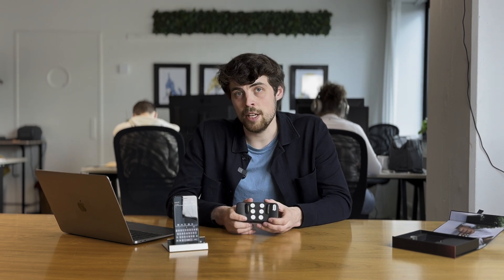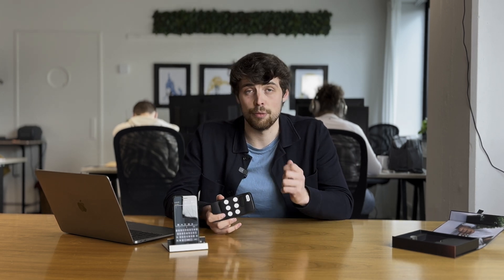Once we start typing, we'll use a combination of buttons at the same time, and this is based on using braille. Get yourself familiar with the numbering of the different buttons — it is quite easy. After a while you might even forget the numbering because you'll just remember what each letter or number is. Maybe write it down somewhere or put it in audio notes. Our next step is already typing the first 10 letters of the alphabet, and that will be the final part of this training.